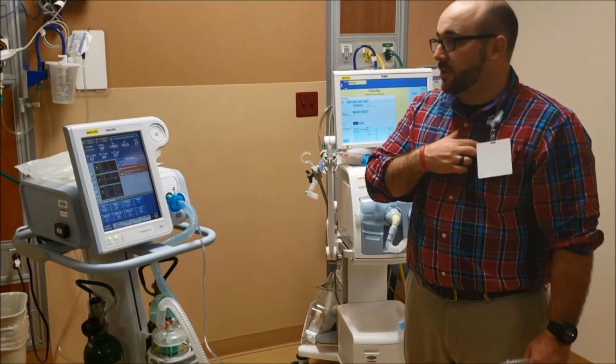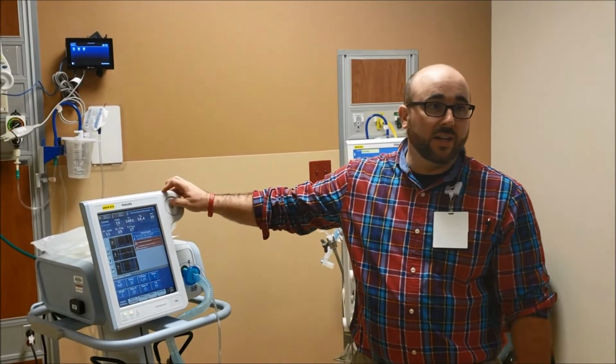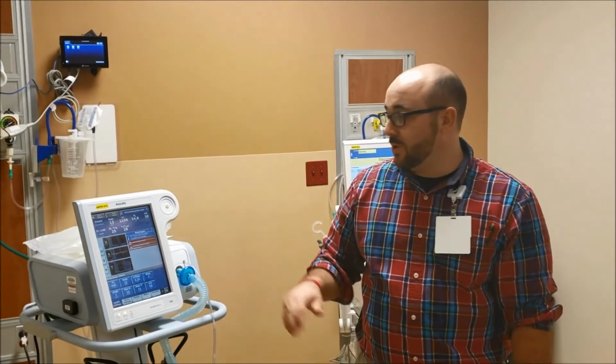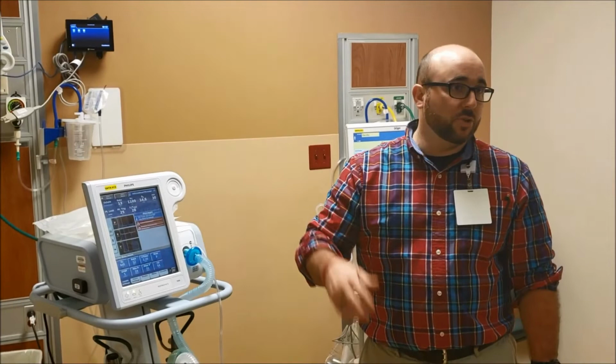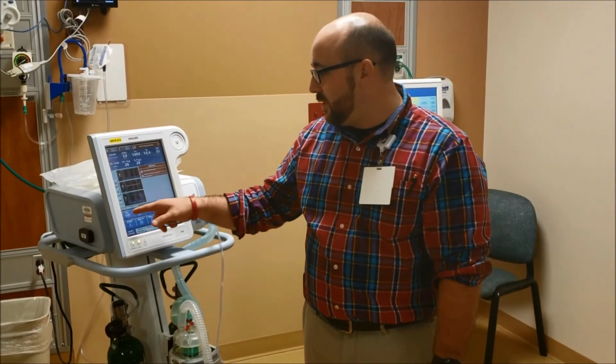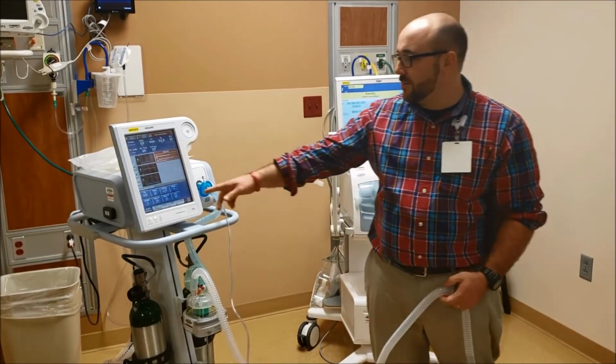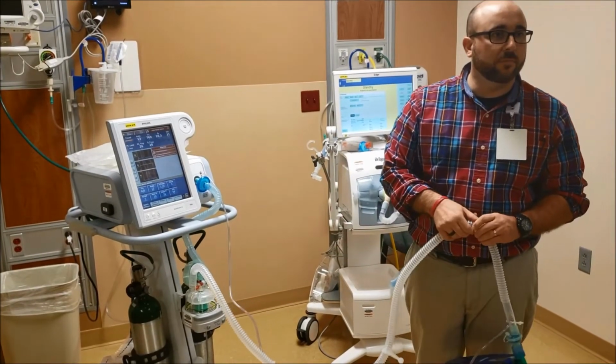So what we'd probably do is we would take one of these machines and we just call it a PACU machine, and we could set it up with generic settings. So when you turn it on, it comes up with the settings you want. So they could just say generic settings, and probably what you would do is you just come in and you just change the volume, and everything else would come through. The volume and the oxygen, maybe. Everything else would just come through.